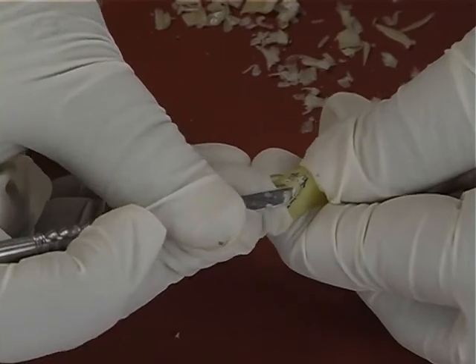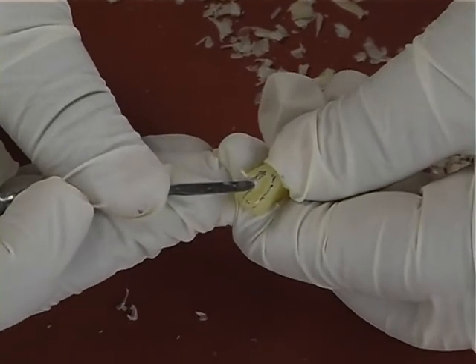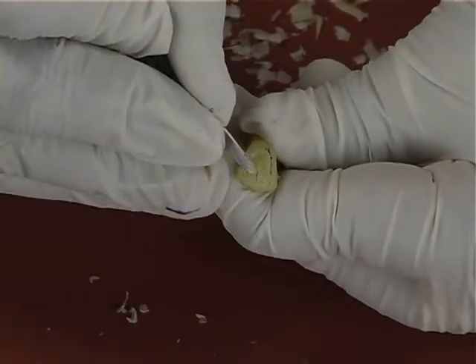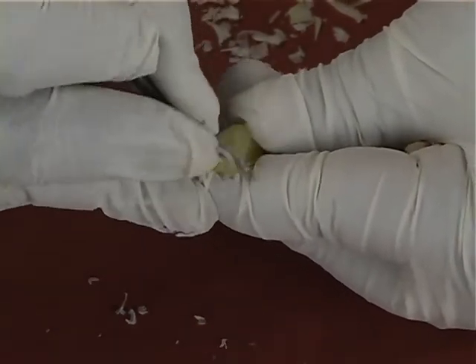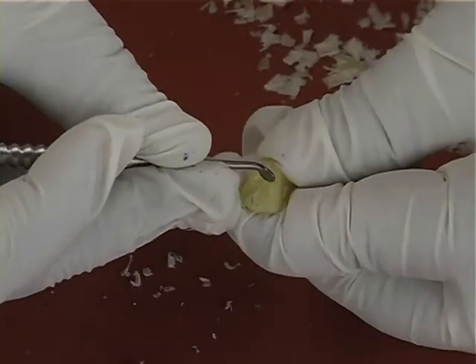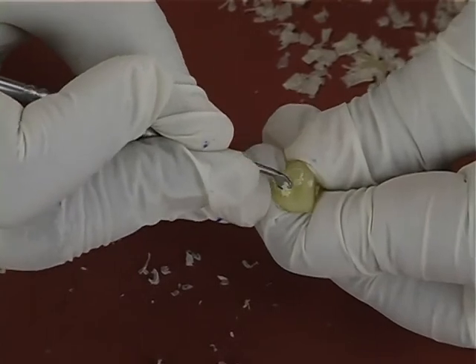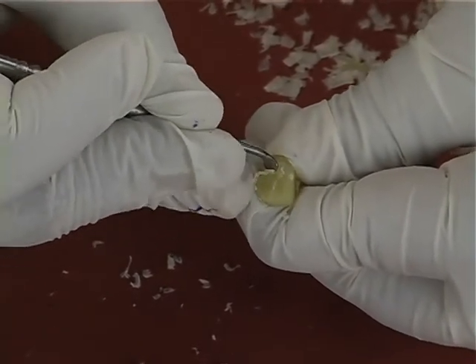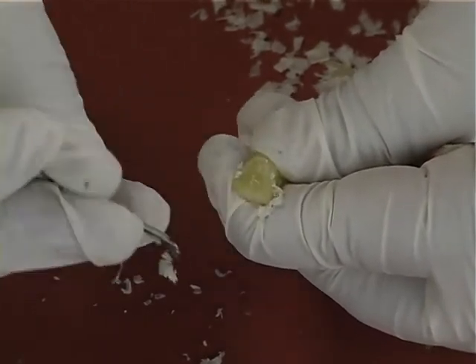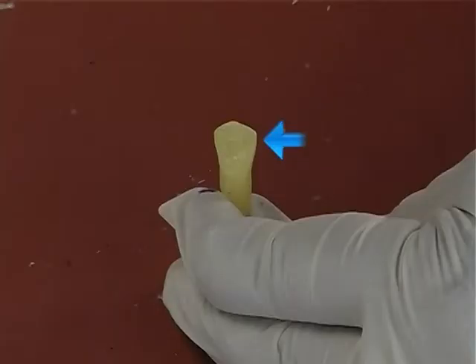Now the lingual fossae are carved by slowly removing the wax from the fossae area. After carving the fossae, the lingual ridge, marginal ridges and the cingulum are rounded so that they merge with the fossae. By using the scooped end of the wax carver, the lingual fossae is carved accurately below the cingulum area. This shows the completed lingual aspect.